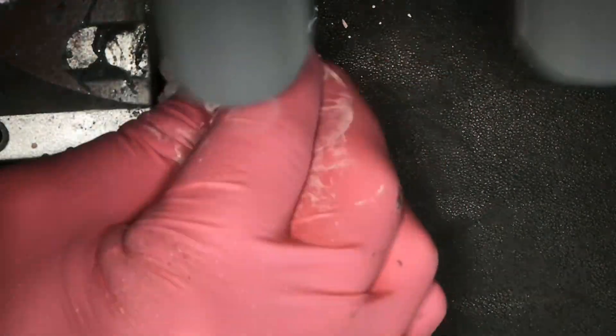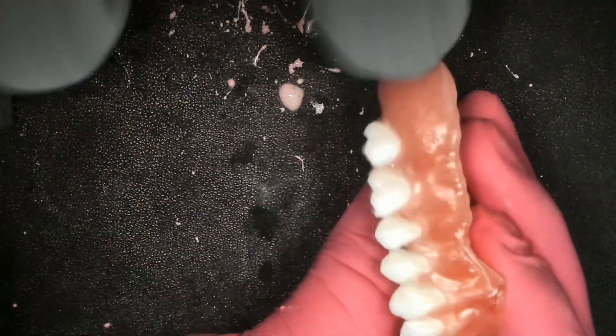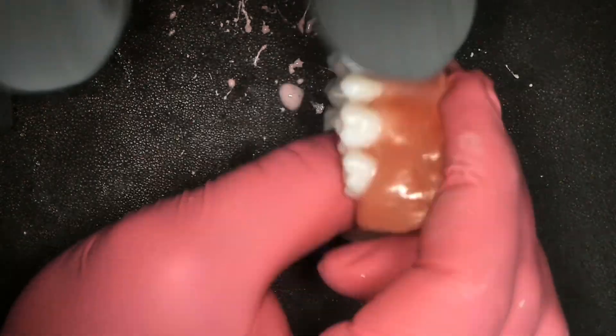This step is the critical step, and it was designed to be used after a candy coat — not on a non-candy coated denture. And look at this, it is going to be immaculate. Step number 3 is nothing on the denture — absolutely nothing on the denture — and it is just a buff.